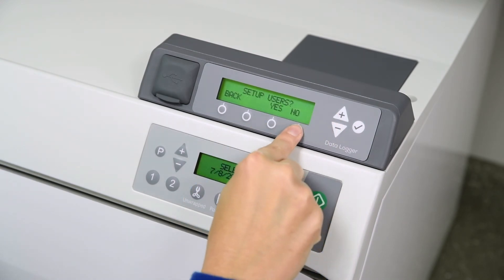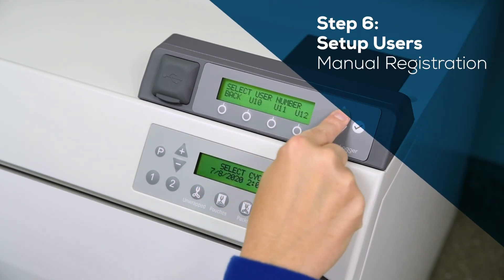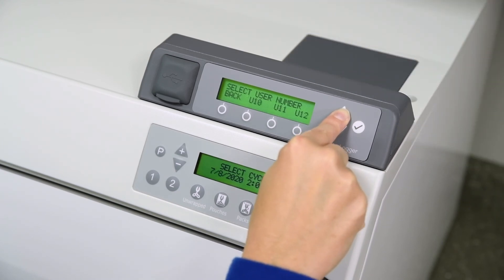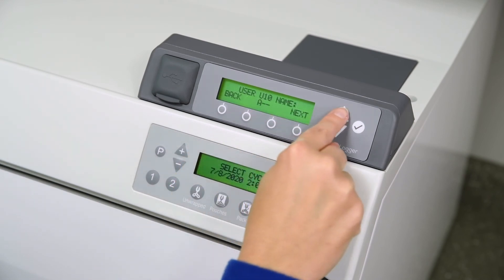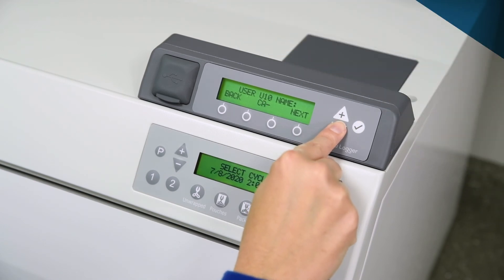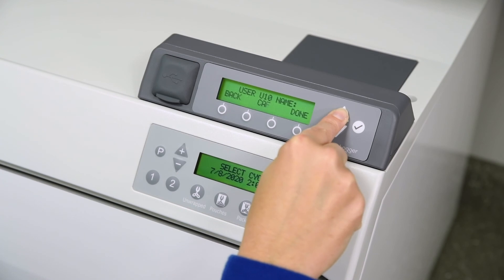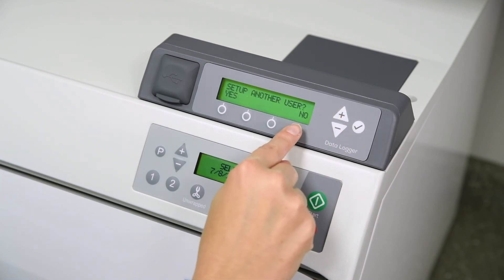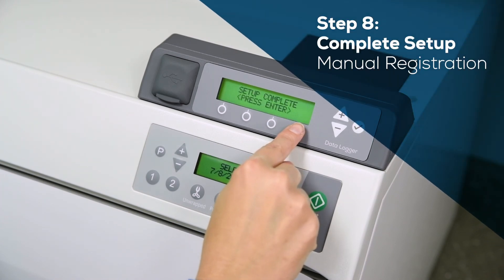Or you may press No to proceed to set up the user menu. From 1 to 12 users can be set up in the sterilizer data logger. Use the plus and minus buttons to scroll through the user identifiers and select them for setup. Enter a unique 1 to 3 character identifier for each user of the sterilizer. When all users have been entered and identified, select No when prompted to set up another user, then press Enter to complete setup.